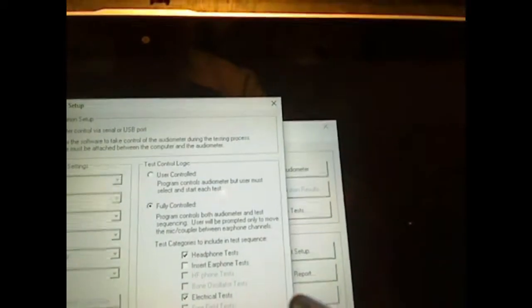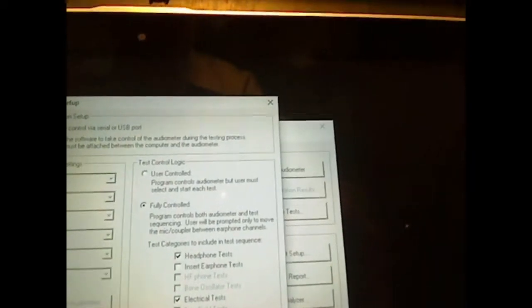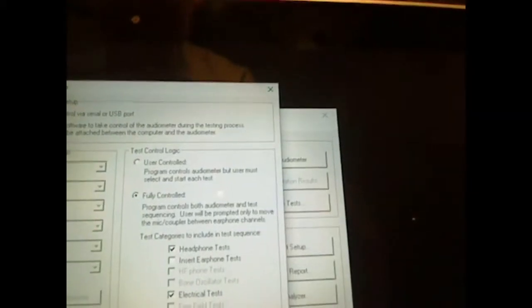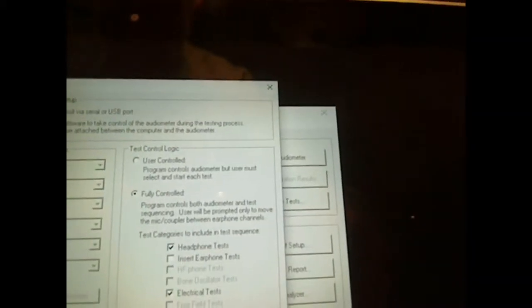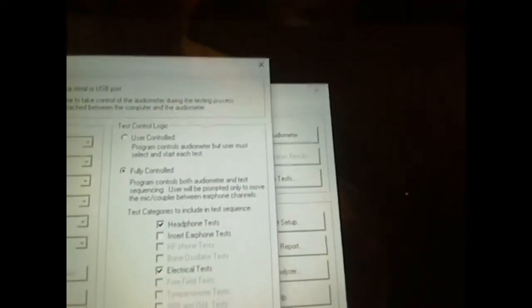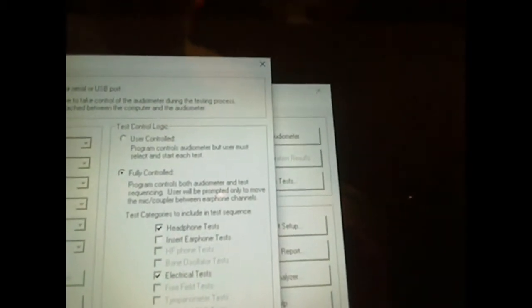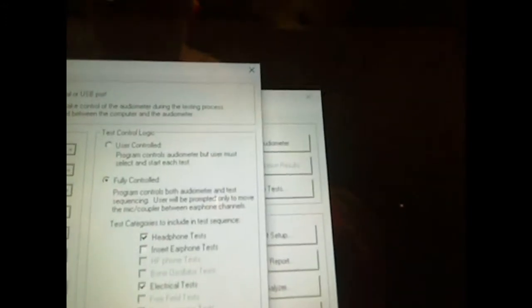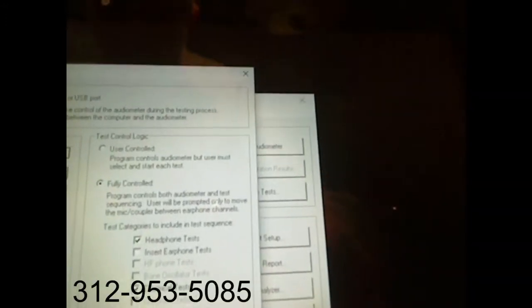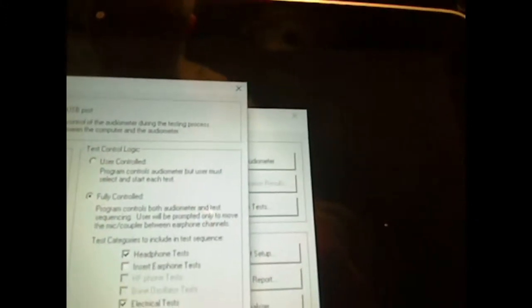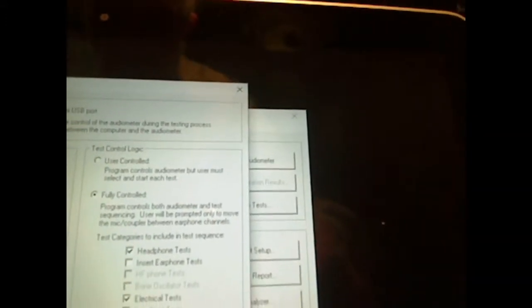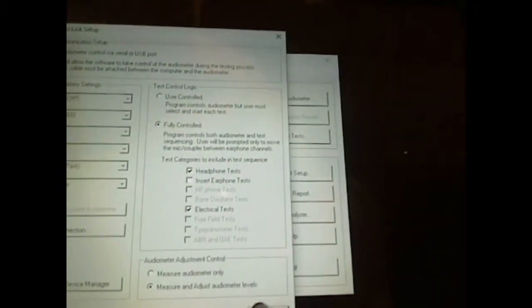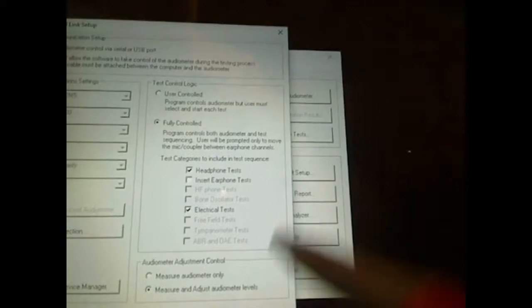That's a little different because there's a lot of calibration systems that can't do the electrical thing and I think I'll explain that to you just a little bit later on or give me a call and then I'll explain it. I can do a measure only or a measure and adjust. I'm going to just take and do a measure and adjust and I'm going to say okay.